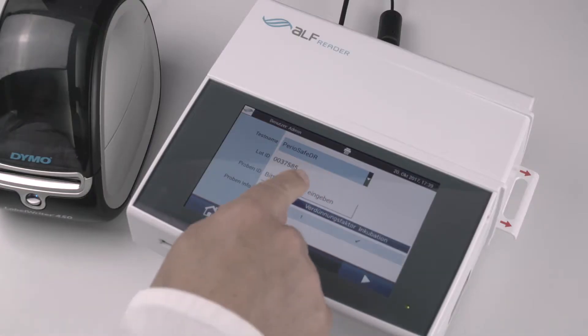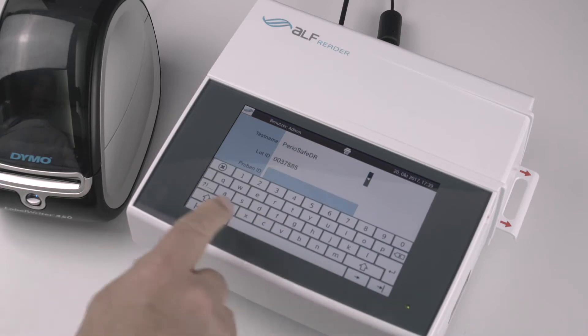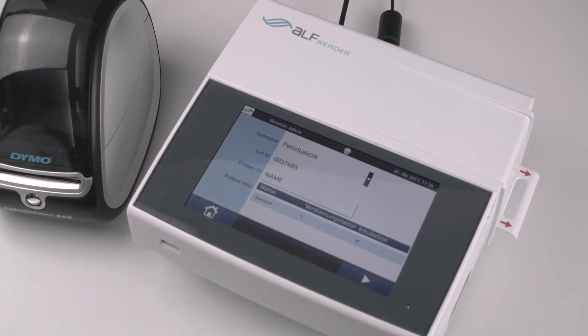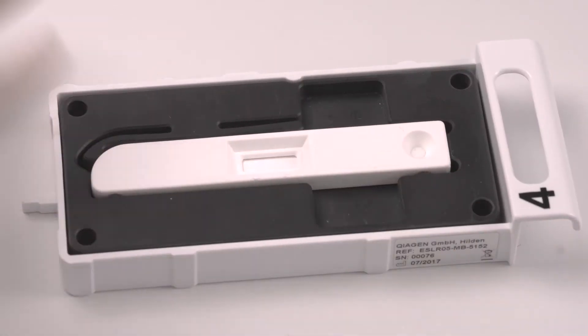Now you may enter the patient's name or ID number if you like by pressing the field Sample ID. Now push the blue Play button at the bottom right-hand side of the screen.